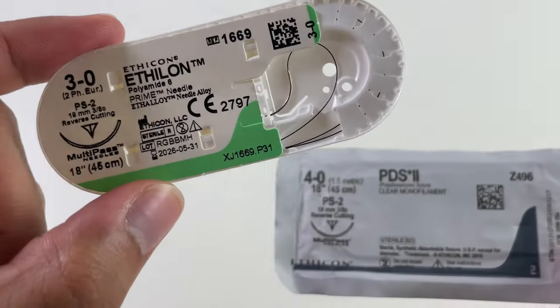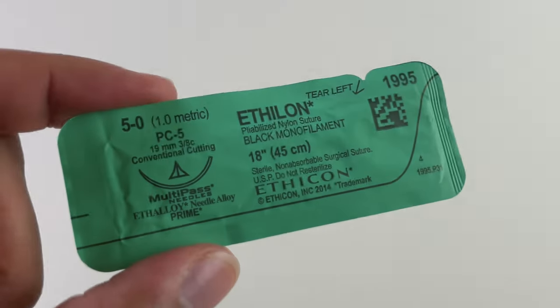There are several types of needle tips. The most important to know are the taper needle tip, the reverse cutting, and the conventional cutting. There are also spatula needles, taper cut needles, and blunt needles — which can be used when cannulating the skin for filler placement — but we'll focus on these three most common types.